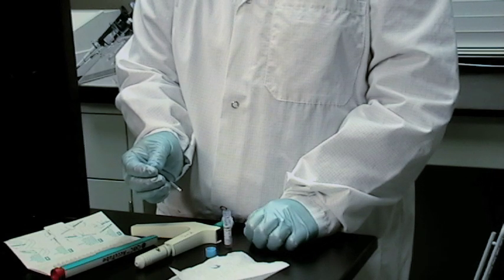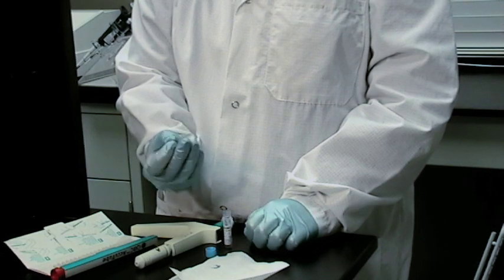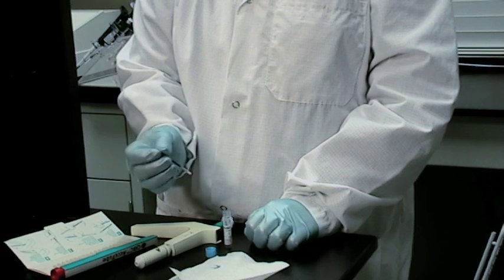Rock the Accutube back and forth at least 5 times end to end, allowing the synthetic control to mix well with the orange coating.